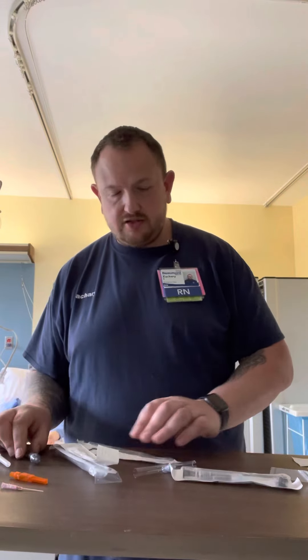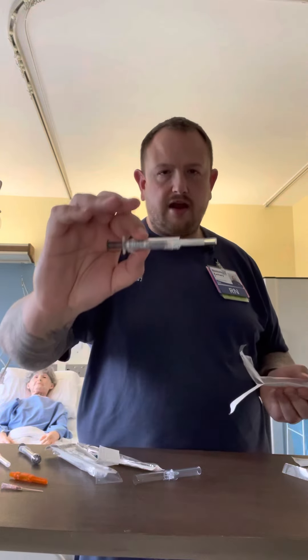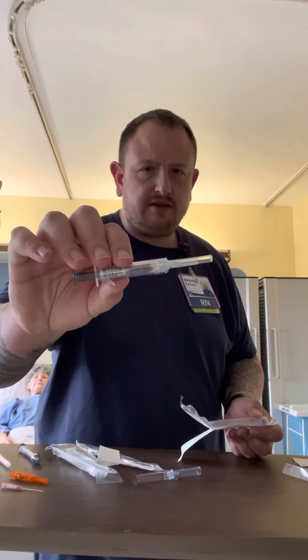The new product itself — once we open it up, I'm going to show it to you brand new out of the package. We'll have two pieces: you'll have your actual barrel, syringe, and needle. At the very bottom, you're also going to see the cap.